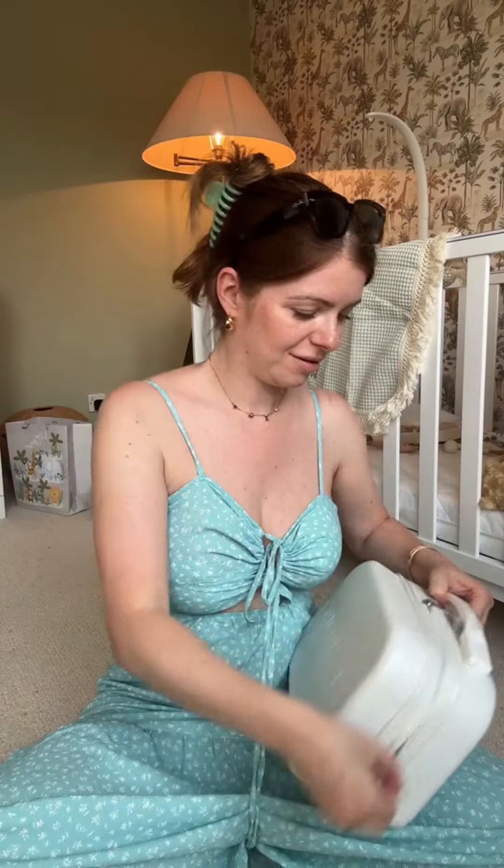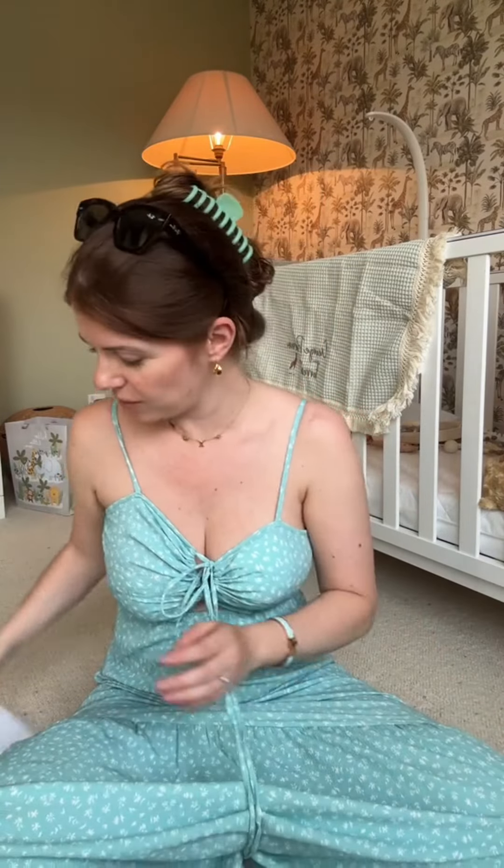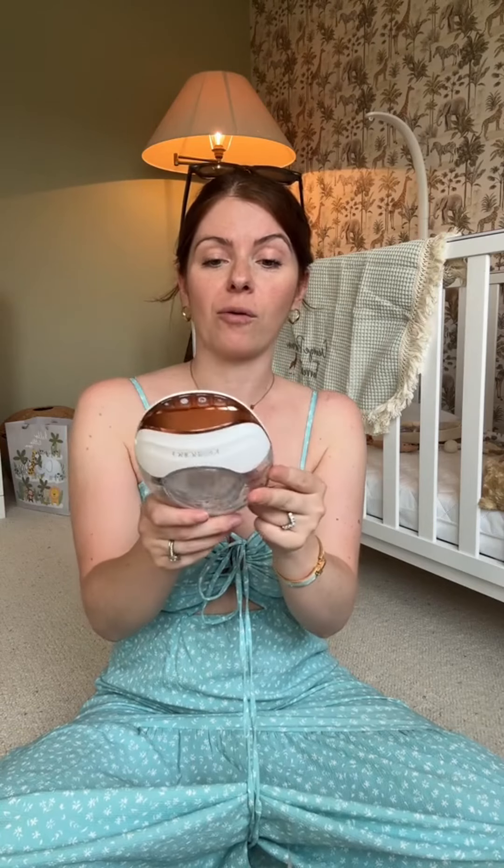Look at that cute little case! I honestly don't know where to start — there's so many little bits in different areas. Take a little goodie bag. Let's start with this, which I'm guessing is instructions. Start with the pump — that is really pretty. I know it shouldn't matter for a breast pump, but that is really pretty and much more slim than my current one.